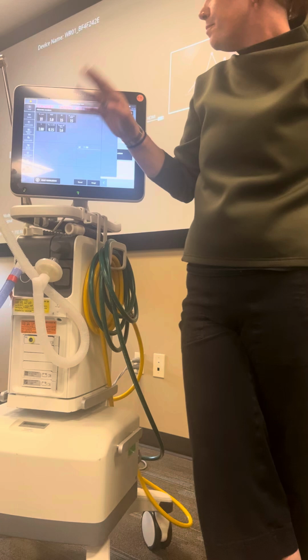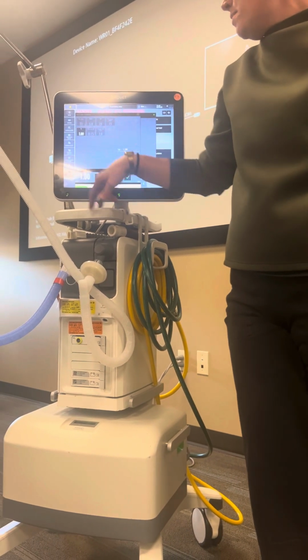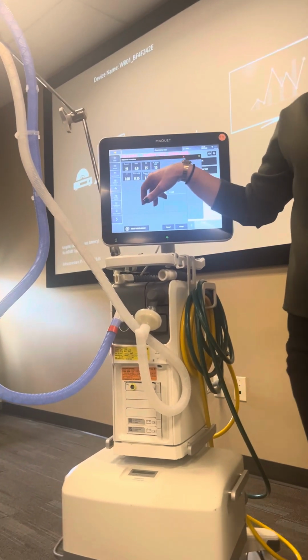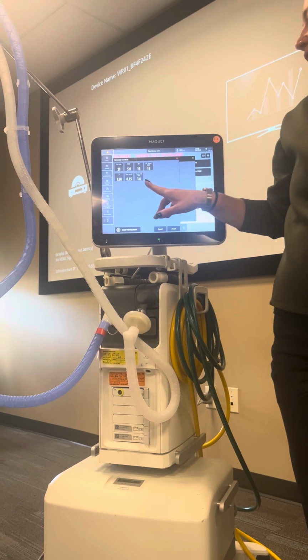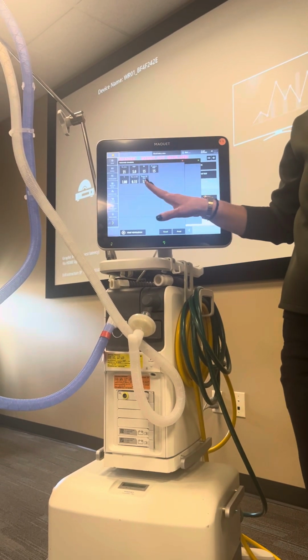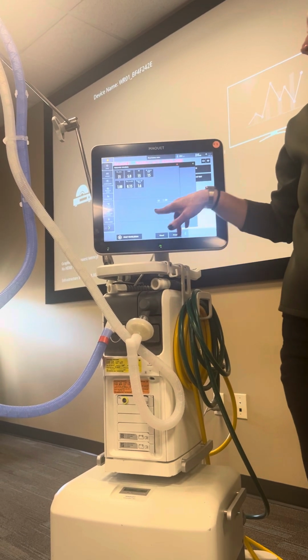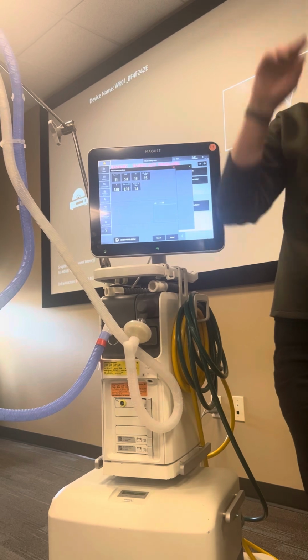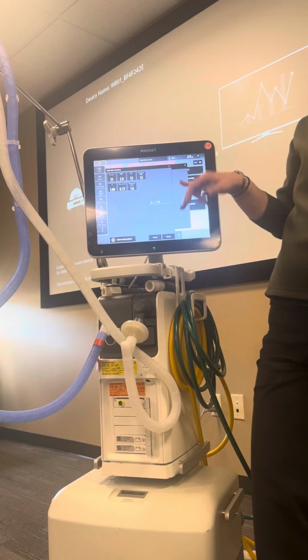It's fine with me. Then we have our inspiratory time, our rise time, and our trigger. That we're not going to get into too much, but we'll give you safe starting recommendations. So that's essentially how we're going to manipulate our inspiratory to expiratory ratio, which should be between 1 to 2 and 1 to 3 when we're starting out.